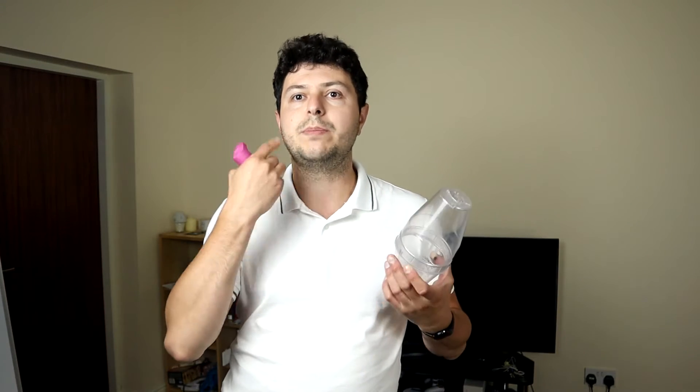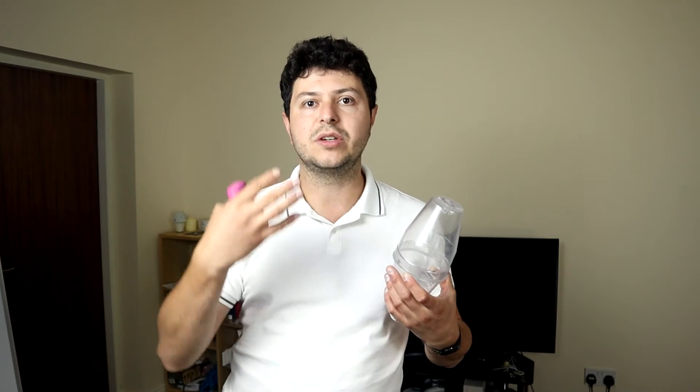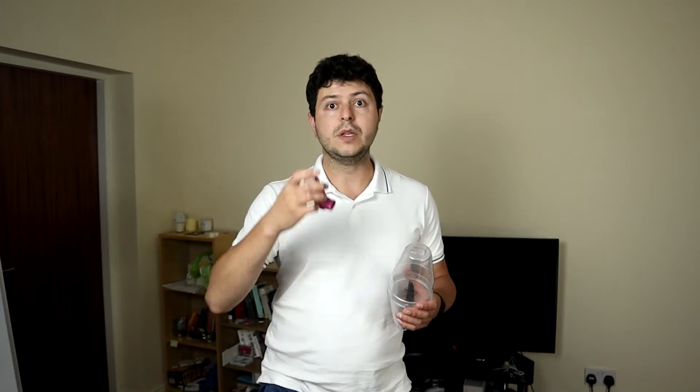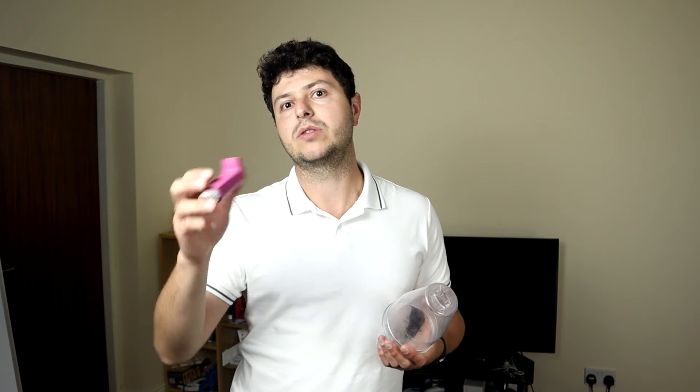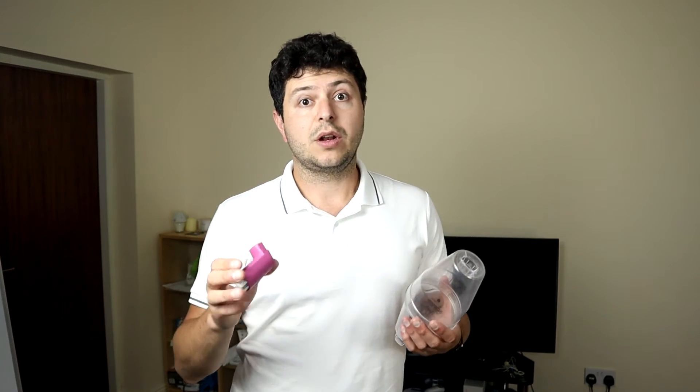This is really important because it's a more efficient delivery mechanism for inhalers that produce a mist. It's also great when your inhaler contains corticosteroids, because the large droplets will end up depositing on the upper airways and tonsils. If you don't rinse them out — and it is recommended to rinse your mouth and throat, gargle, and spit the water out after using a corticosteroid inhaler — patients can sometimes get side effects such as a hoarse voice or oral candidiasis. The dose of corticosteroid in inhalers is very low, so it doesn't really get absorbed systemically; it's just a local effect that can occur when the device isn't used correctly.